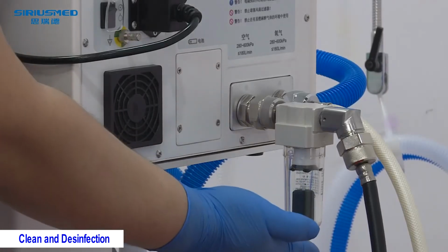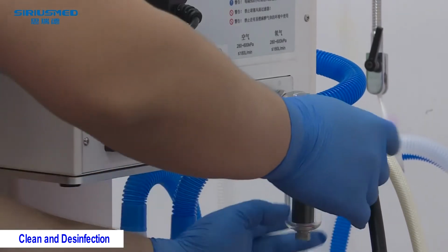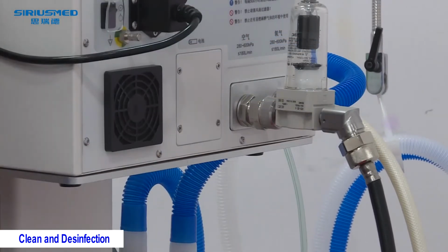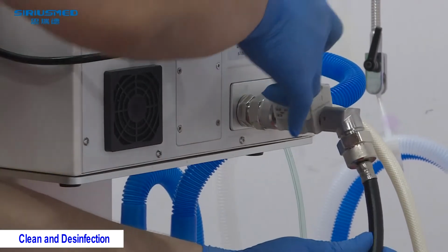Notice of the air filter. Please pay attention to keep the air filter downside. Never put it upside. In this way, there will be leakage. It's not allowed. Please keep it downside.